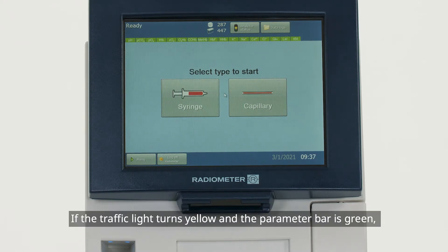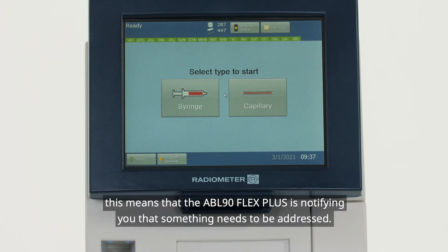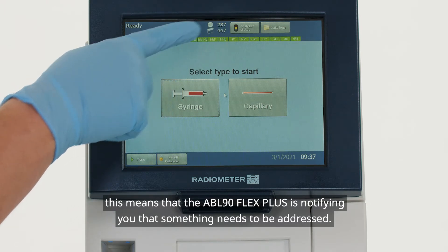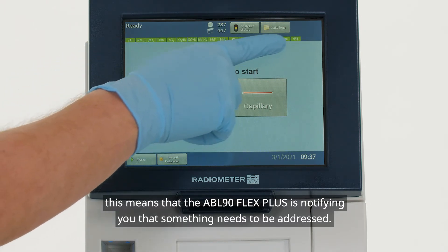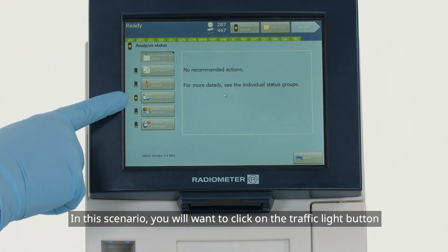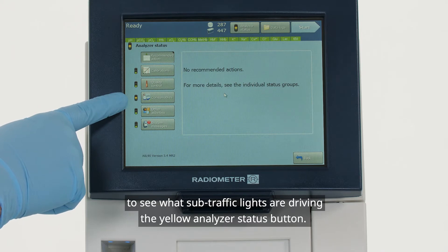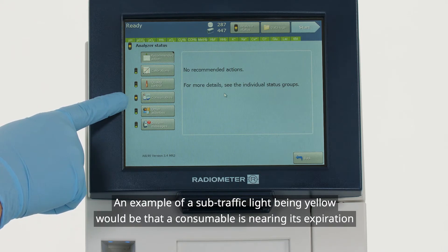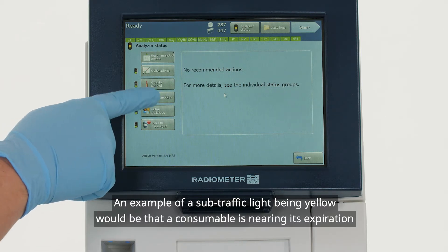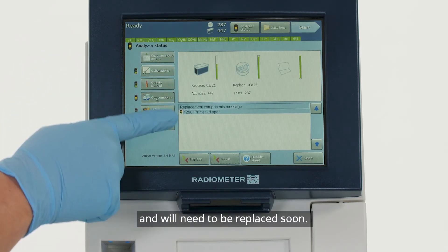If the traffic light turns yellow and the parameter bar is green, this means that the ABL90 FlexPlus is notifying you that something needs to be addressed. In this scenario, you will want to click on the traffic light button to see what sub-traffic lights are driving the yellow analyzer status button. An example of a sub-traffic light being yellow would be that a consumable is nearing its expiration and will need to be replaced soon.